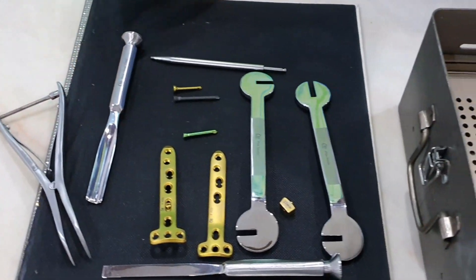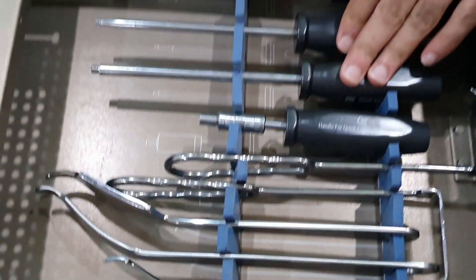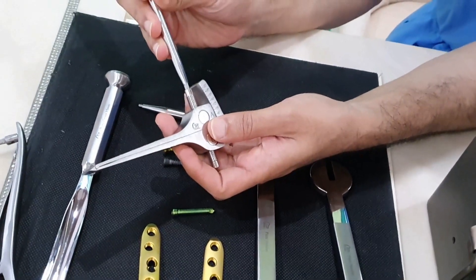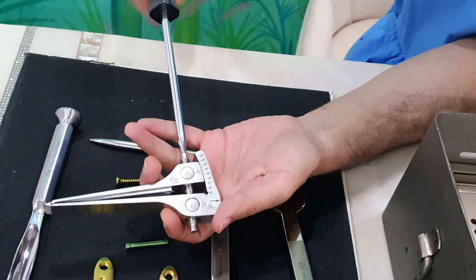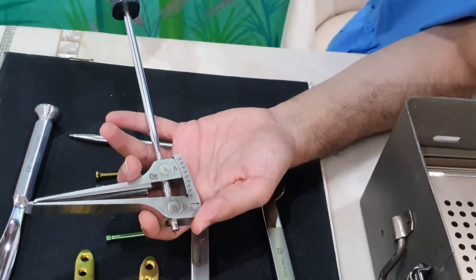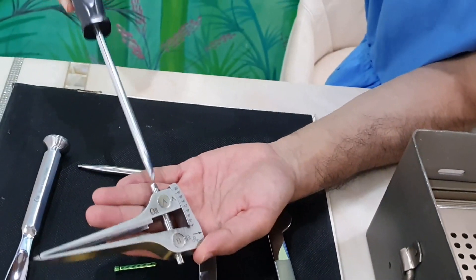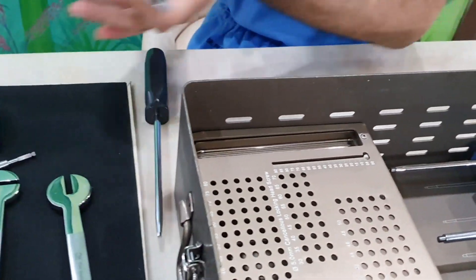There are different depth gauges, retractor sets, and screwdrivers available with the plate. A very versatile instrument included is the osteotomy opener — you use it with the screwdriver to open the osteotomy over the lateral hinge point. This is a key instrument in this particular set.